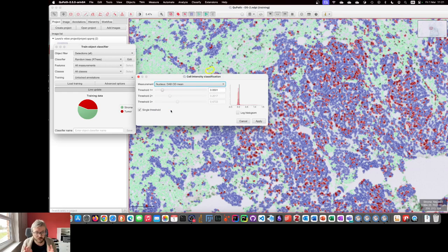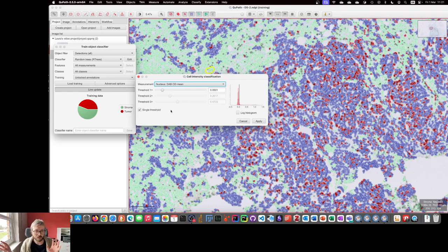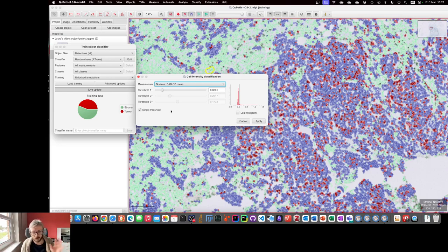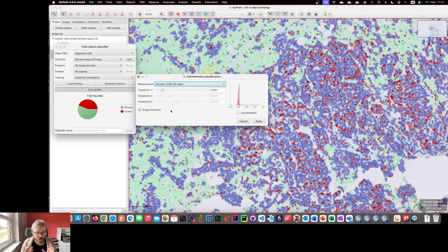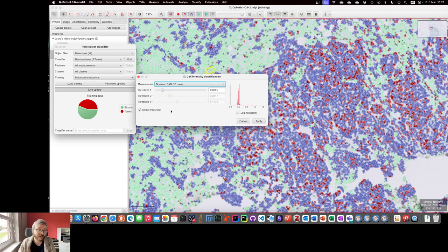It would need to be, let's say you have this open, and then you start adding new cells. Should the cell intensity classification be applied to the new cells as well as the old cells? And what would happen if you press cancel? Should it then go back to the point before you detected your other cells and so on?